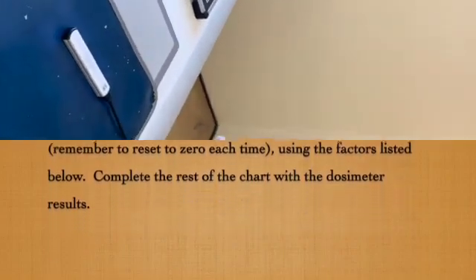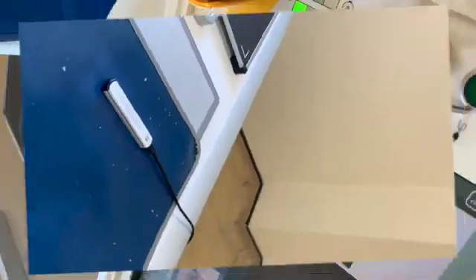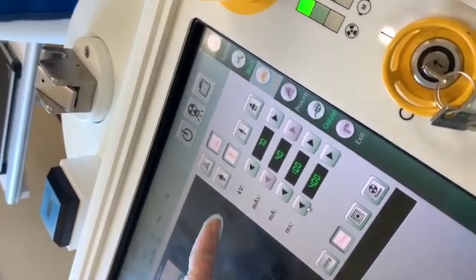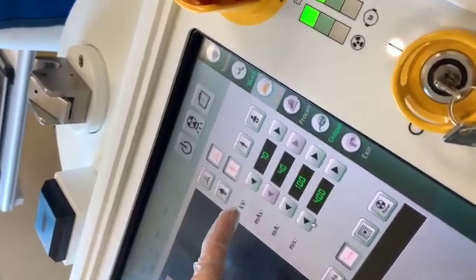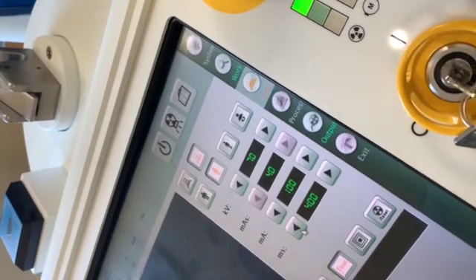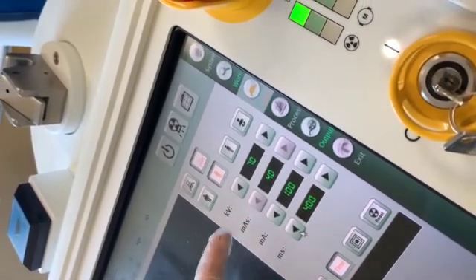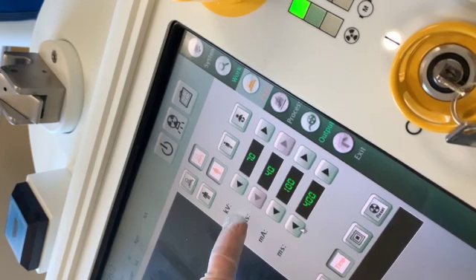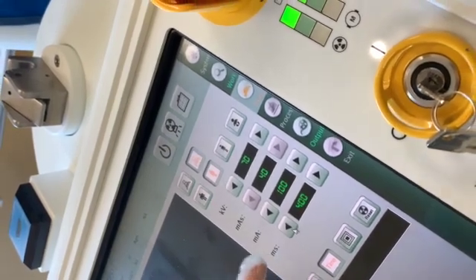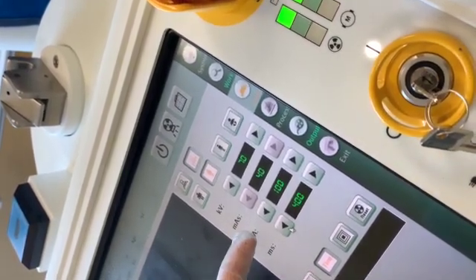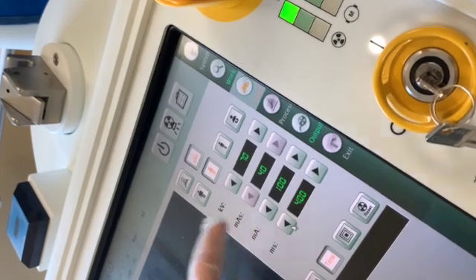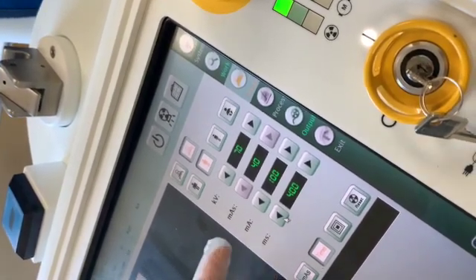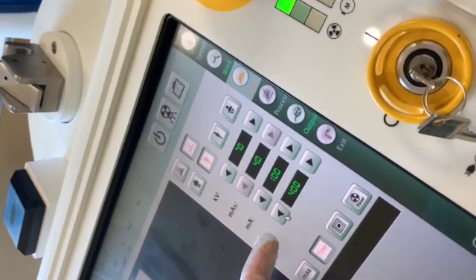After we have set up our exposure area, we are going to set the factors. The KVP is set at a constant 70, and the MAS should be 40. How do we keep the MAS at 40? We have to change the seconds. The MA is 100, a constant, and the seconds, because this is time linearity, is changed with each exposure.